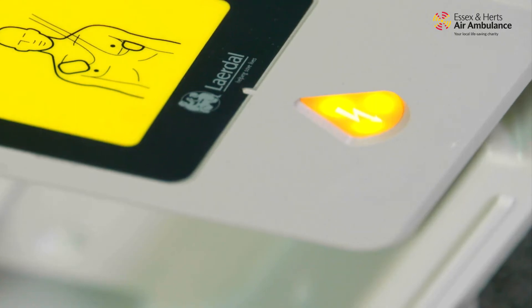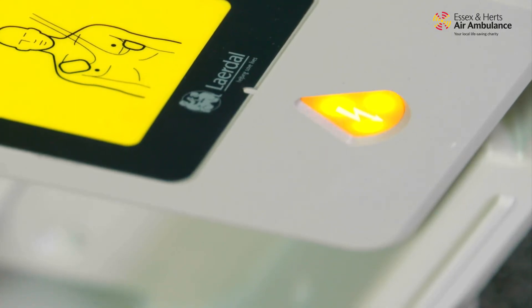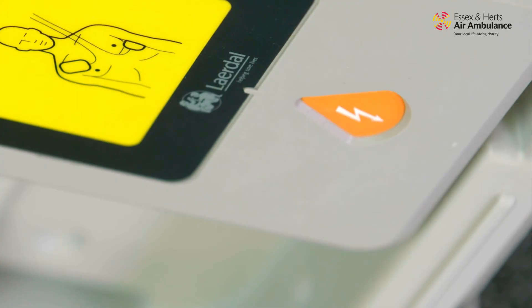The AED announces 'Shock advised — stay clear of patient.' Once that shock has been delivered, yes, the patient is going to do a little jump — you've probably seen it on TV. The AED will then tell you to continue chest compressions, and you simply do as it says.